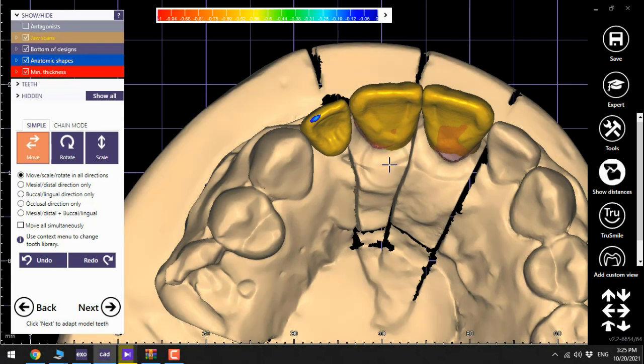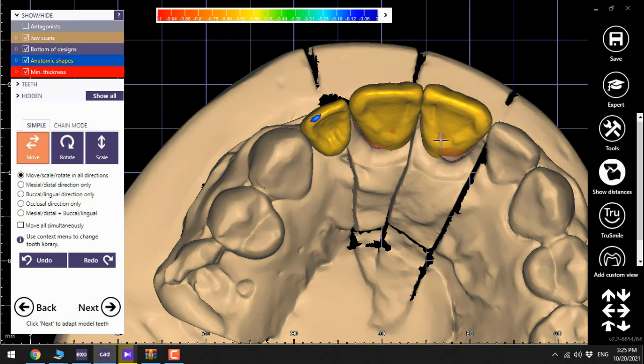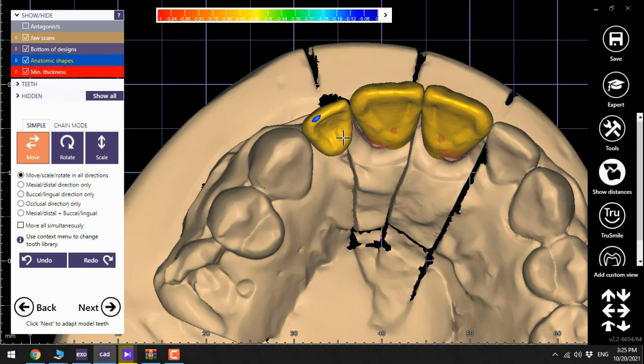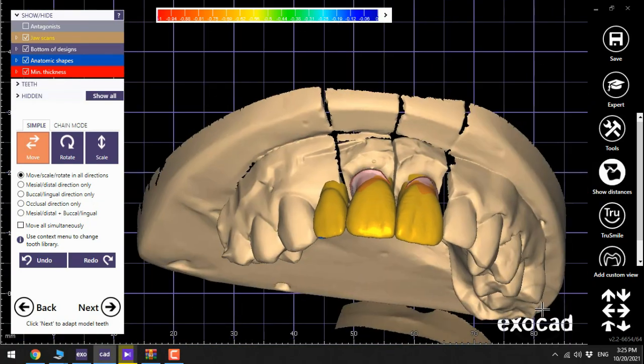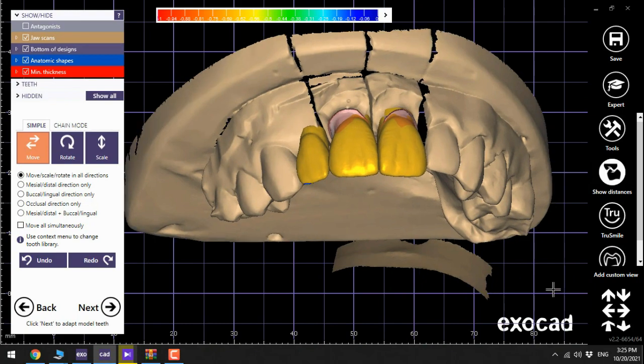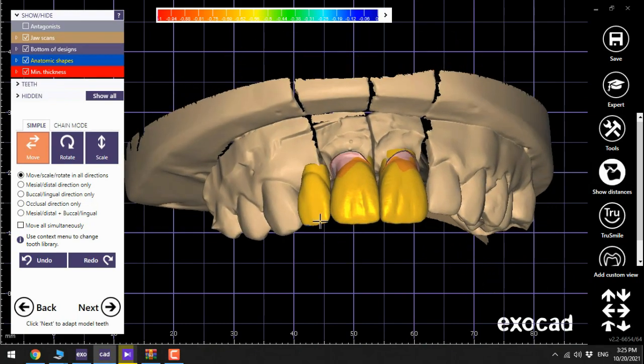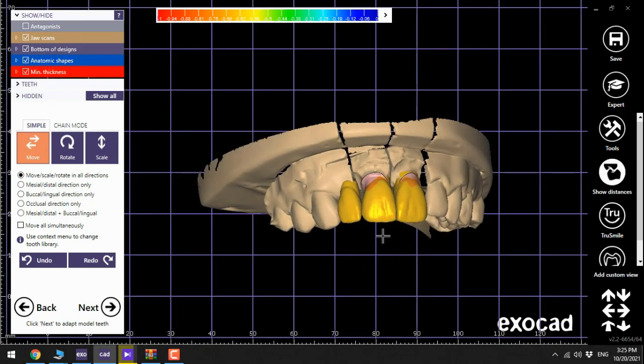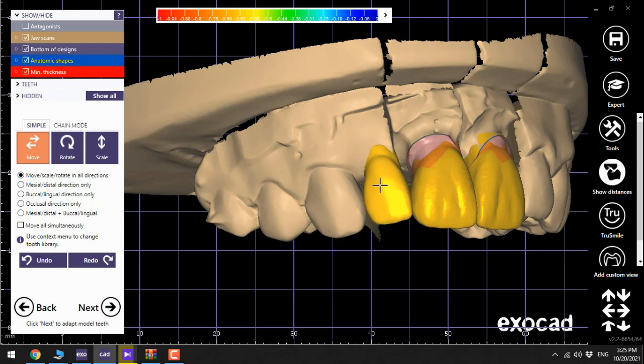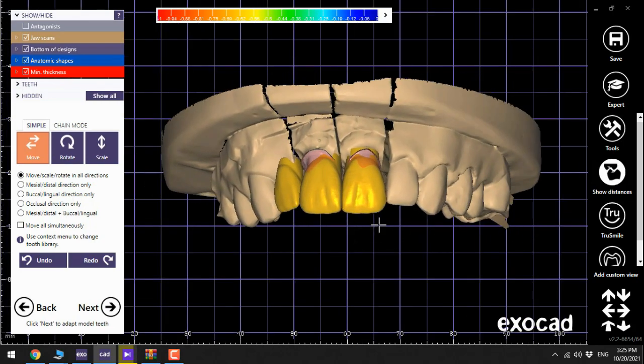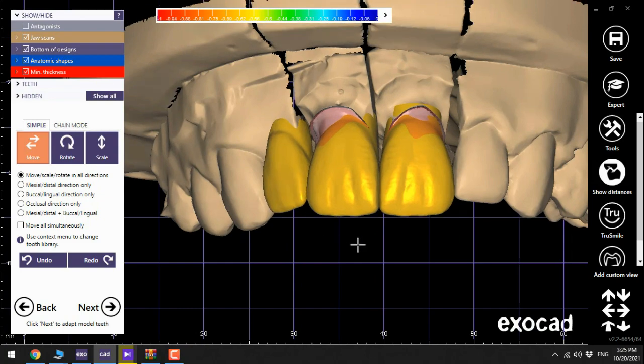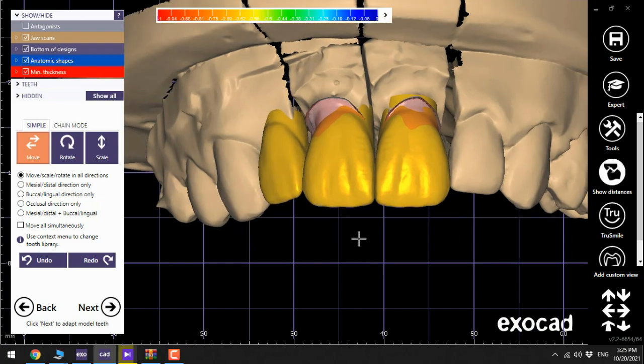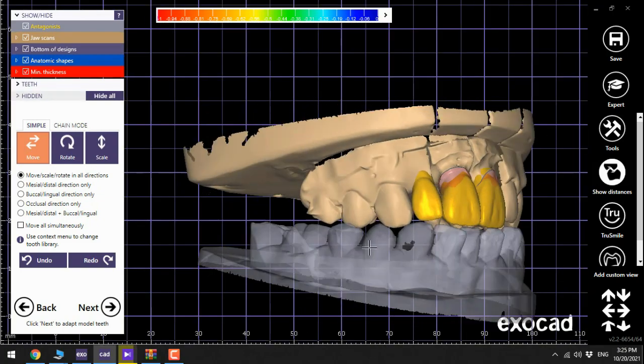Now it takes some time to complete the design. Pay attention that you have various options in the tooth library in Exocad. This is the HHD one but there are several other options and all of them are fully anatomical ones so you can choose between them.